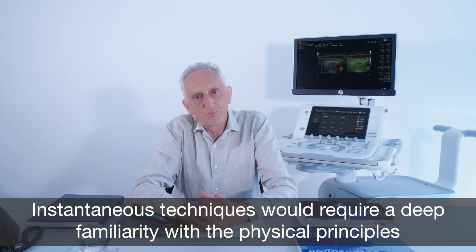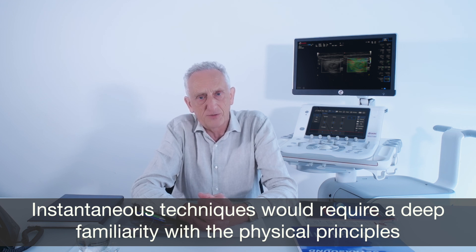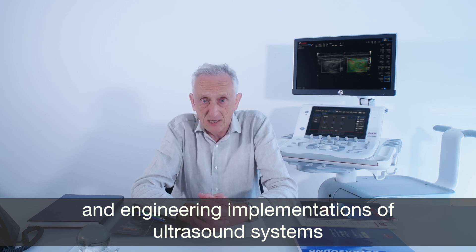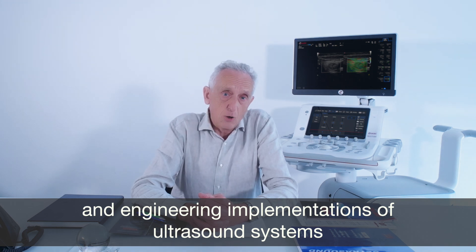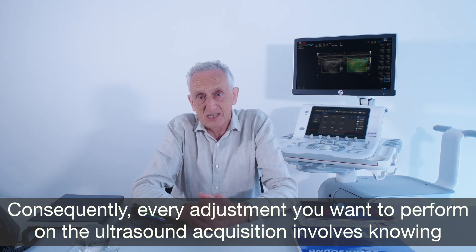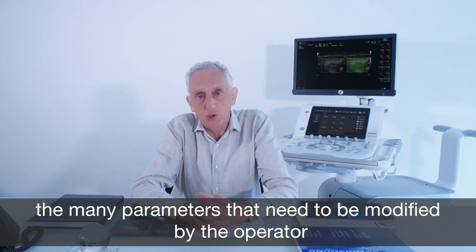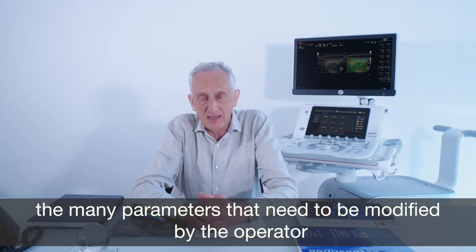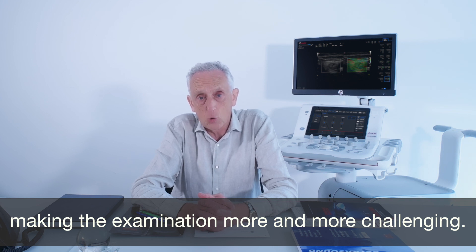Instantaneous techniques would require a deep familiarity with the physical principles and engineering implementations of ultrasound systems. Consequently, every adjustment you want to perform on the ultrasound acquisition involves knowing the many parameters that need to be modified by the operator, making the examination more and more challenging.